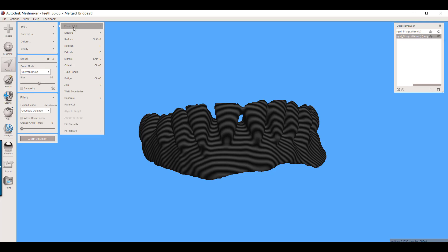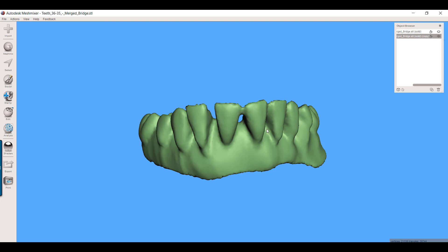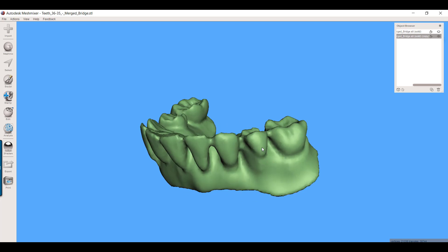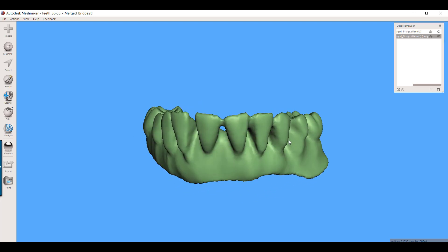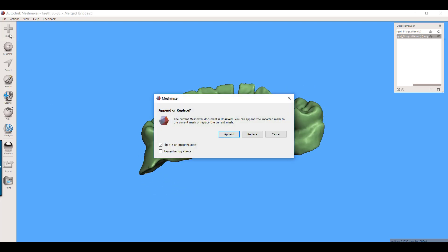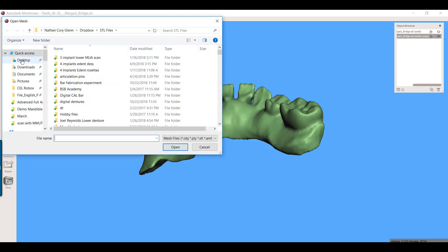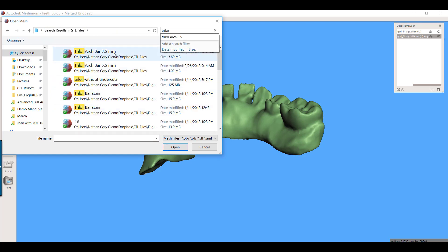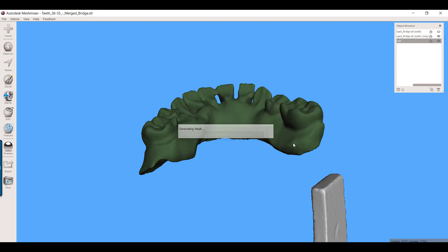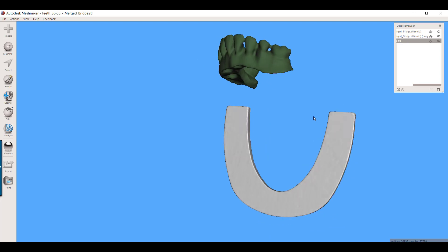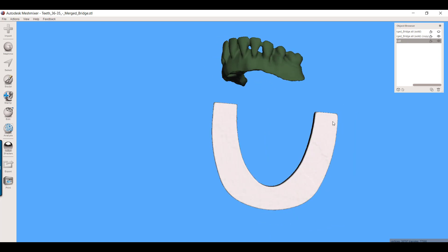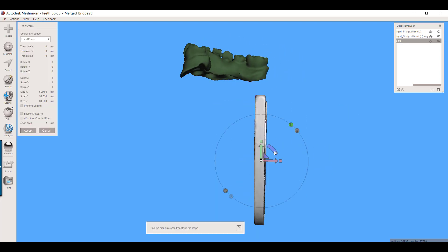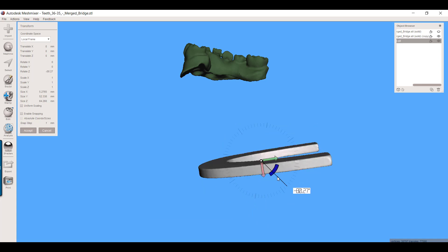But what I'd like to do now is turn this inside out. So flip normals, edit flip normals, and now we have this. I have my original temp. I have now basically that's just a hacked way of getting a smaller temporary, one that's been offset by half a millimeter. Now what I'm going to do, I'm going to import one of the Trilor bars. Now I have scanned these in and I'll try to put a link to it in the video. But these come in 3.5, 5.5, and 7.5. Generally I'm using the 3.5. That stuff is indestructible, so I don't really find much use for the much larger ones. And this is what they look like. This was just how they come right out of the box. It's just a wafer of this composite fiberglass material.